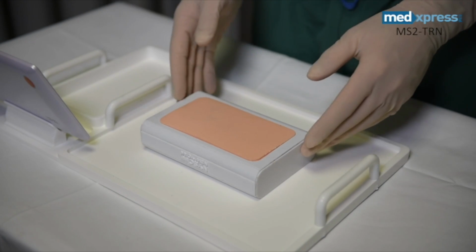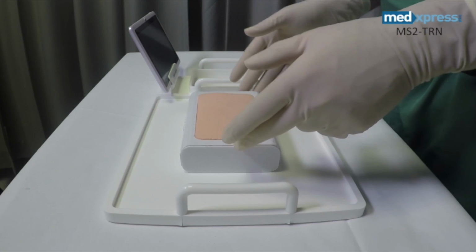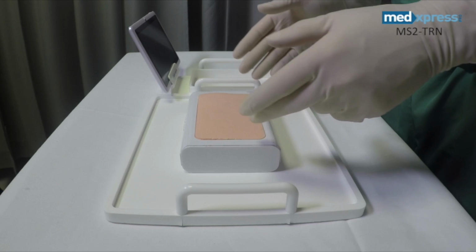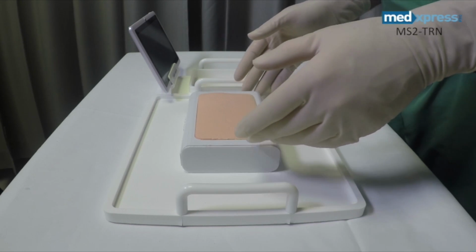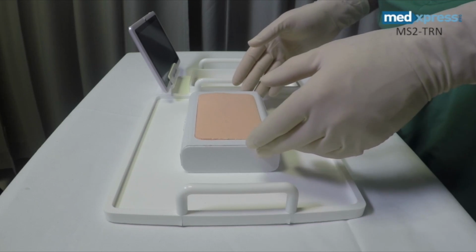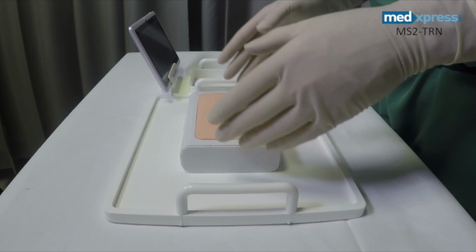The Essential Trainer also allows the student to learn how to inject fluid or local anesthetic around nerve structures, a skill that is very valuable in accomplishing successful and safe peripheral nerve blocks and vascular access.